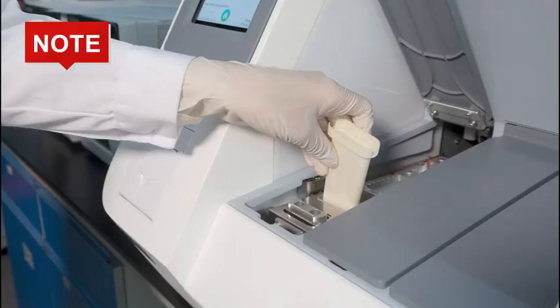Note, be careful not to let the remaining reagent drip or spill out from the reagent cartridge.